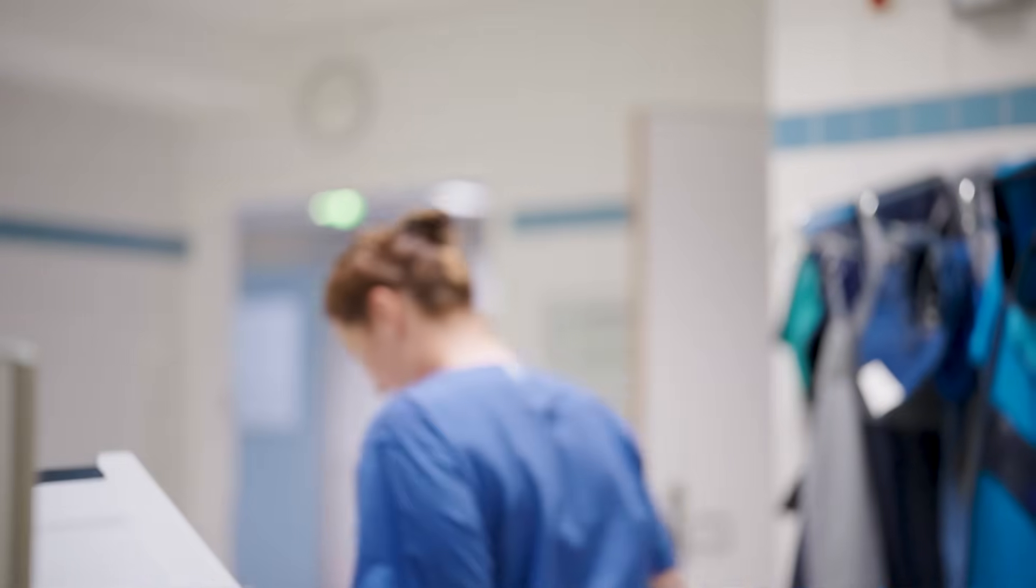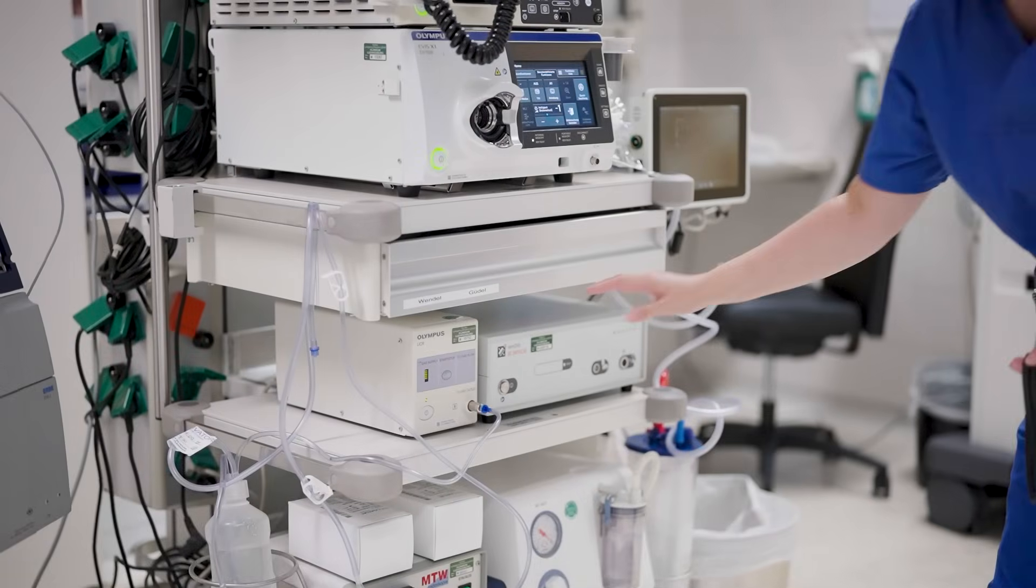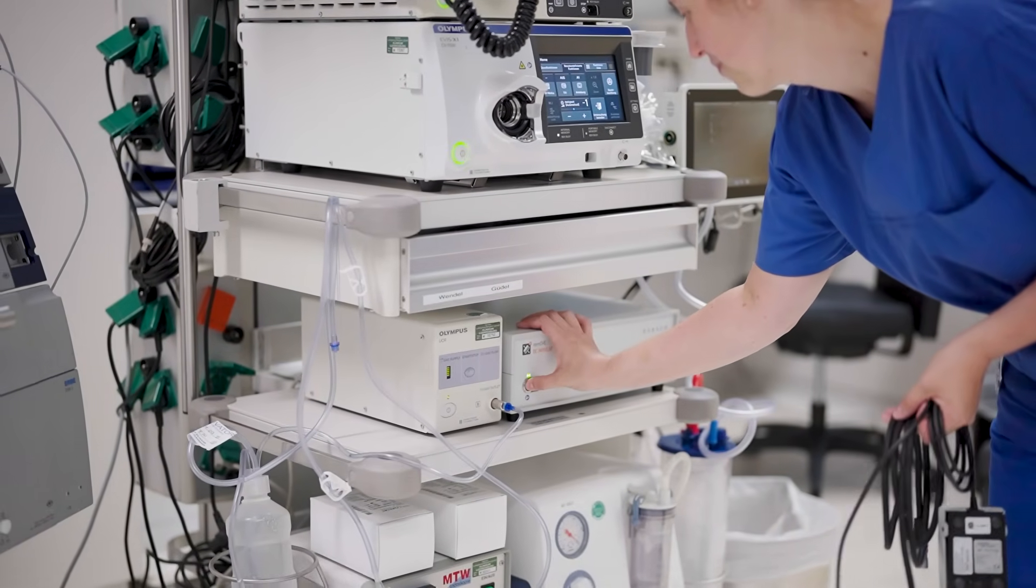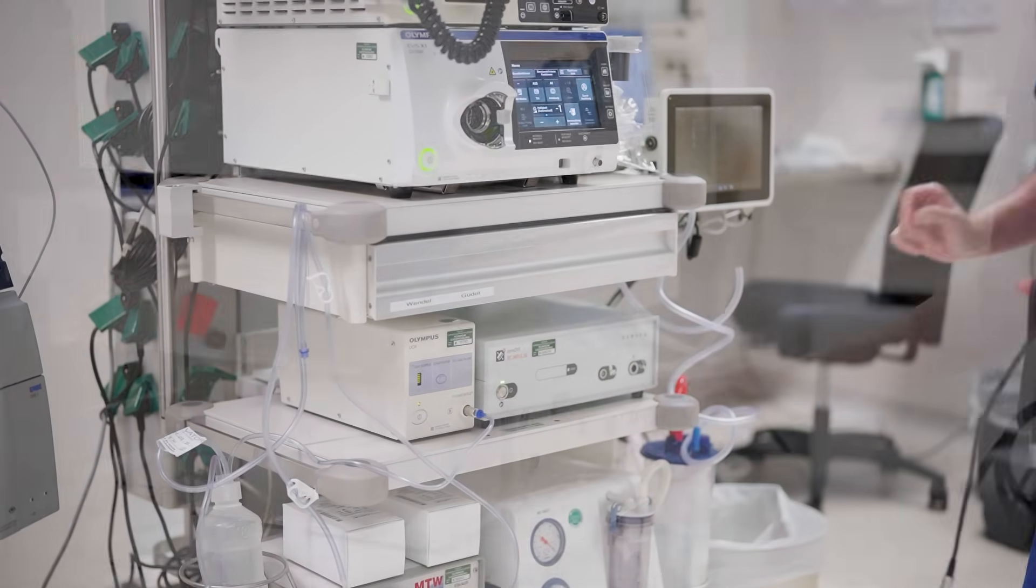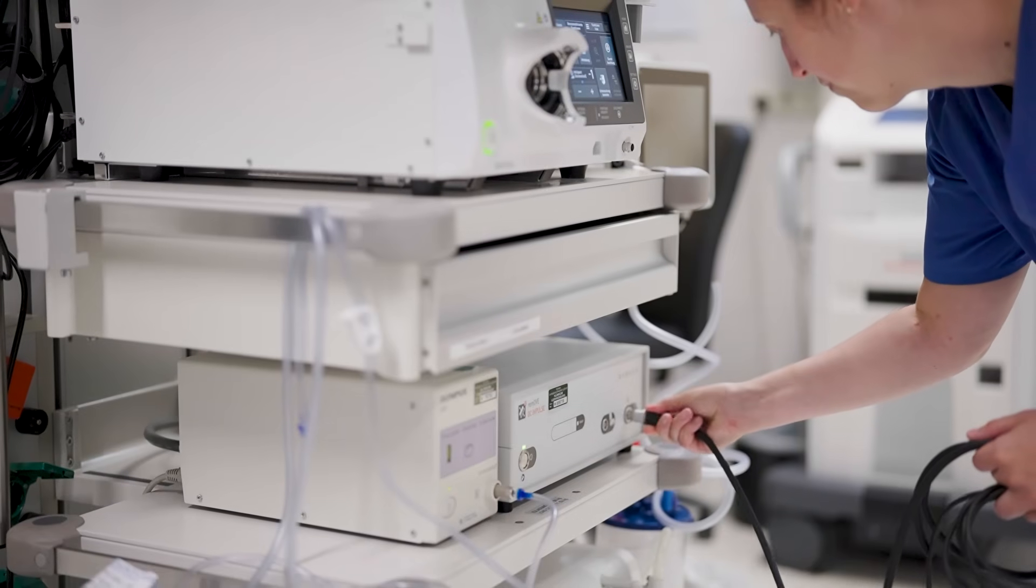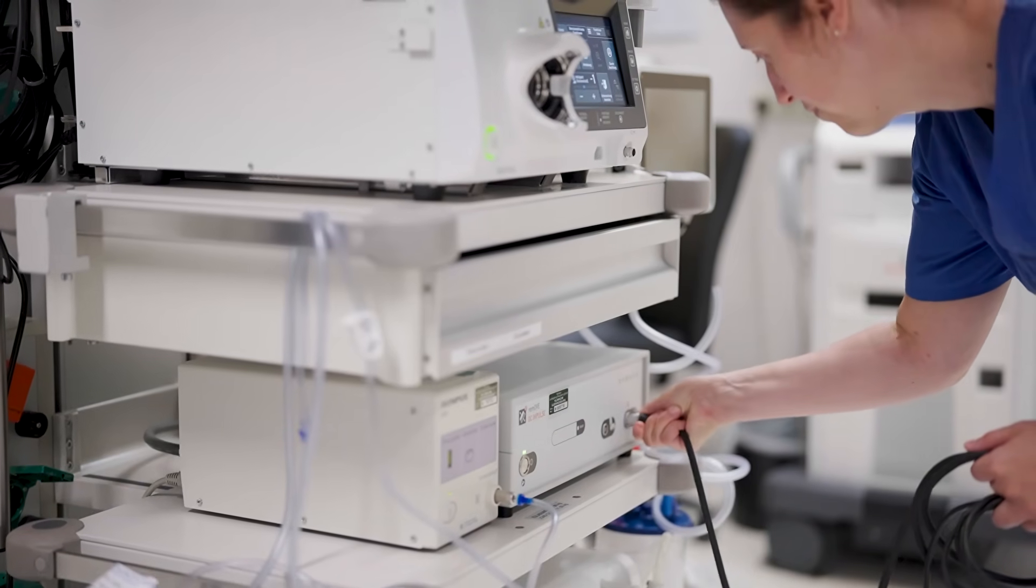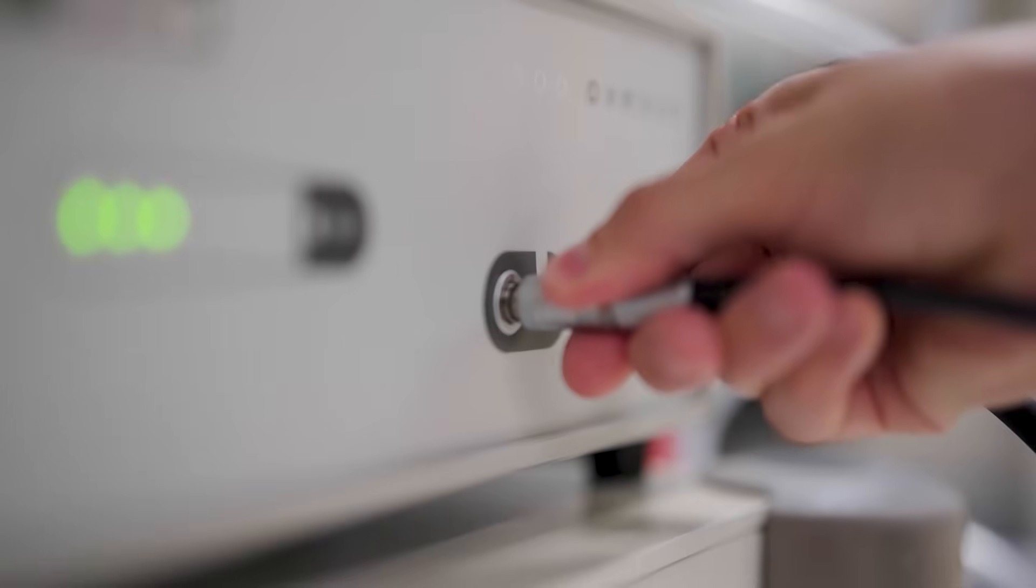Its compact design integrates seamlessly into the endoscopy tower, and its straightforward operation requires no complex settings, making it both safe and easy to use. Looking ahead, we remain dedicated to ongoing development.